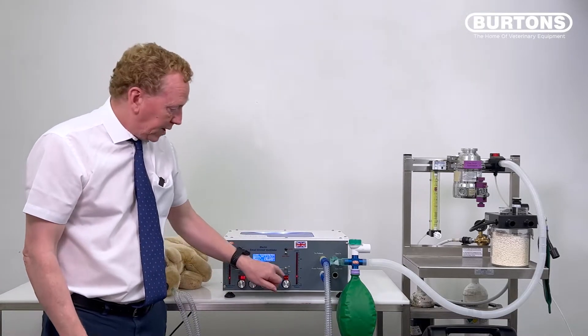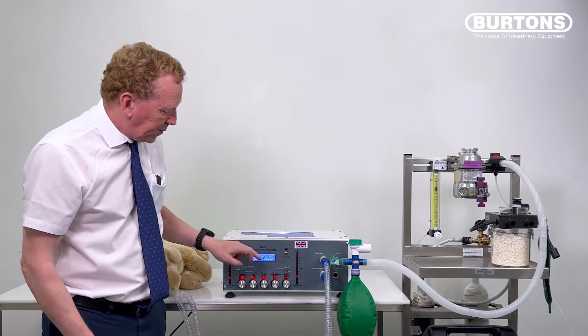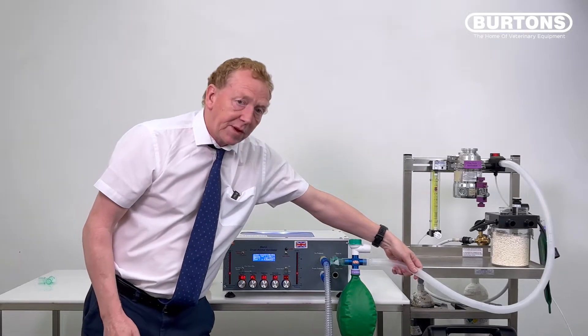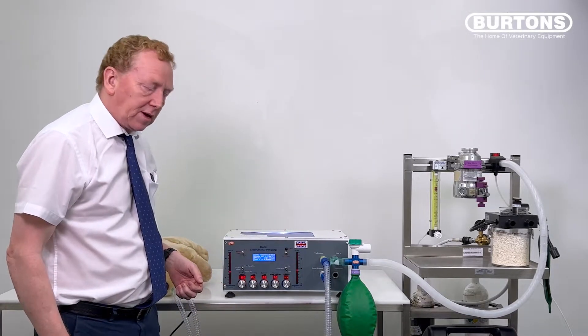So now everything's controlled again, we have a nice rise in pressure, no sudden burst in pressure. We see this tube isn't being pressurized at all because the excess gas is being taken up by the reservoir bag here.